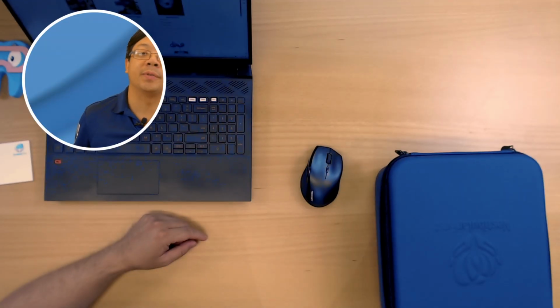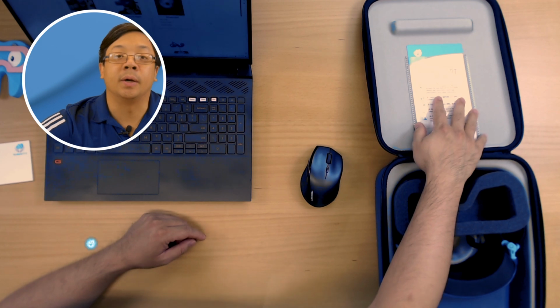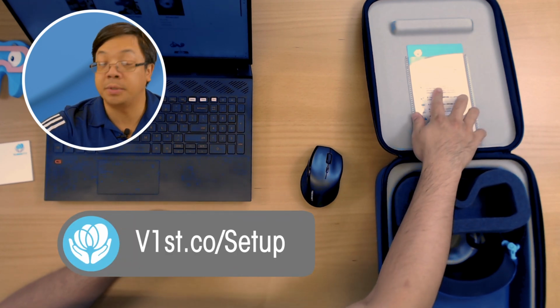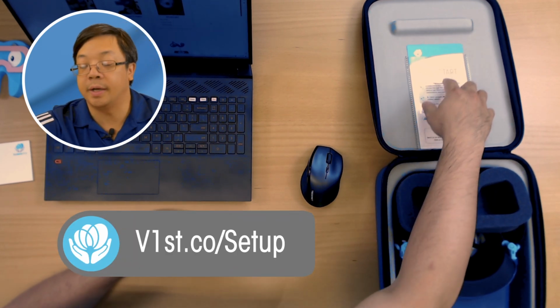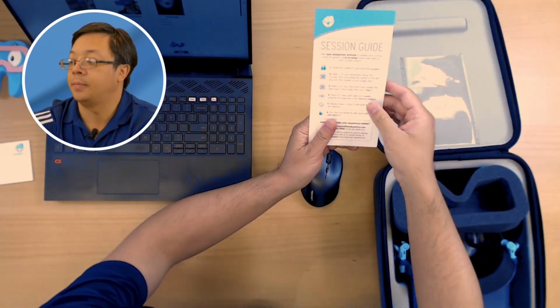As we open our goggles for the first time, we should see our card with a quick start guide, along with a shortened web address that will take you to the setup page. And on the other side is our session guide with quick tips.